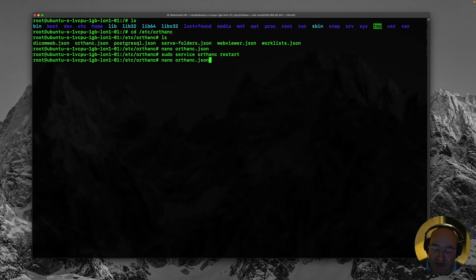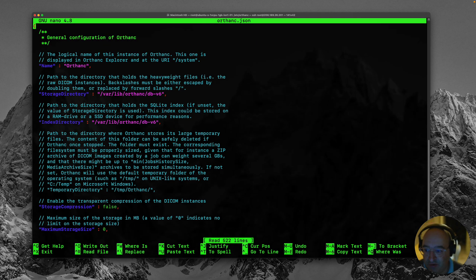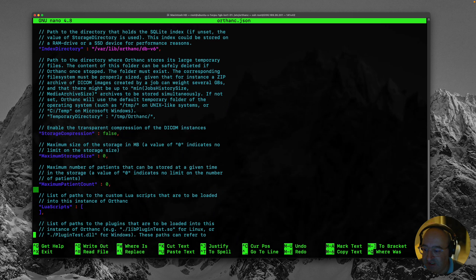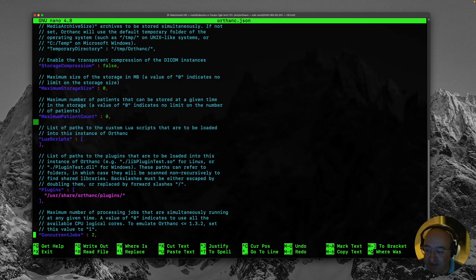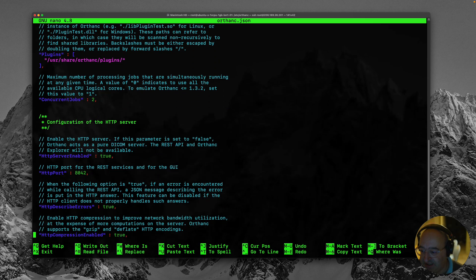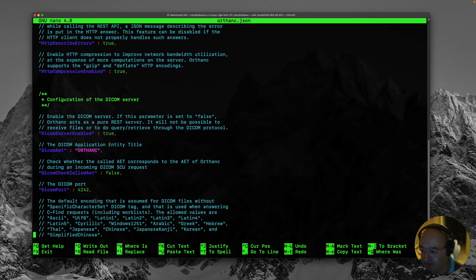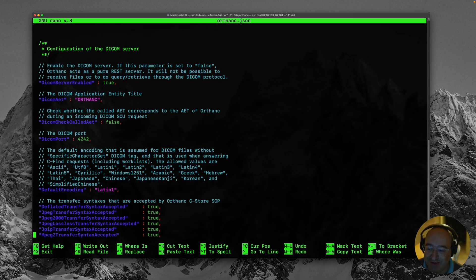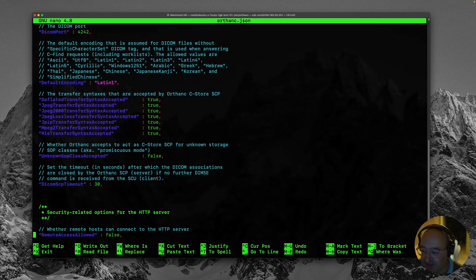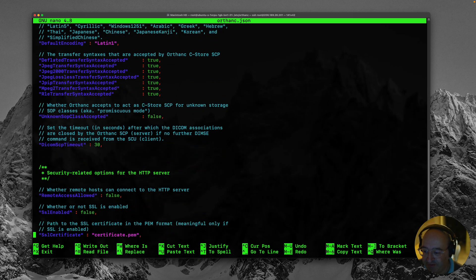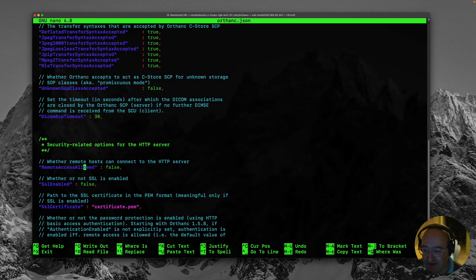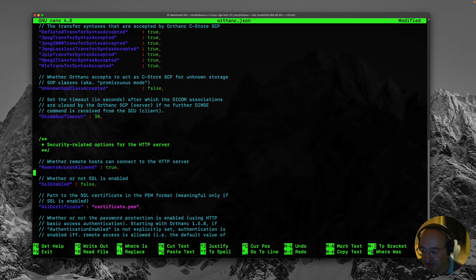So that didn't work. Which is a bit disappointing. So I'm back to the terminal. And I'm going to use the nano editor to look at Orthanc.JSON and see what I did wrong. I like to keep some of these glitches because this is inevitably the suffering which you will go through as you try to get this thing to work. Even though I've done this a few times before, I still glitch out. Here we go. This is it. Remote access allowed. Whether remote hosts can connect or not. I think it's that one. So let's say remote access allowed. True.